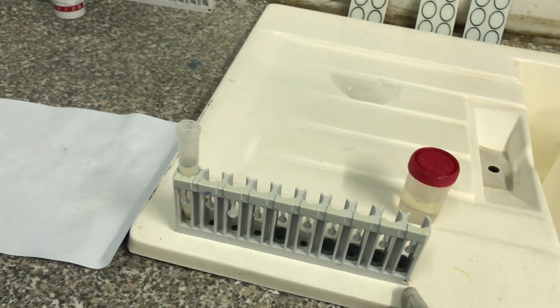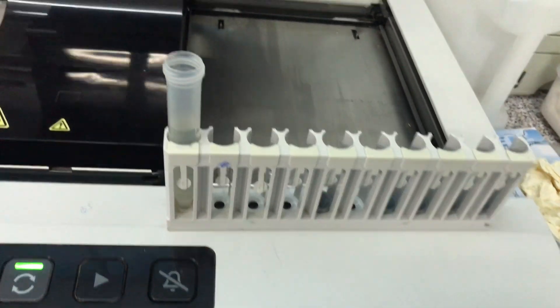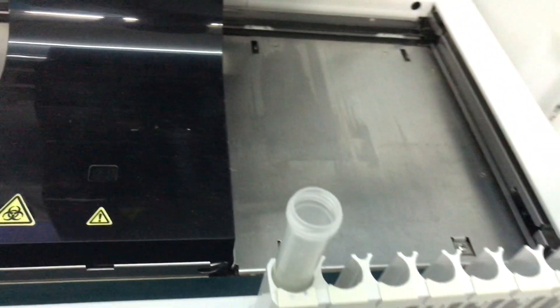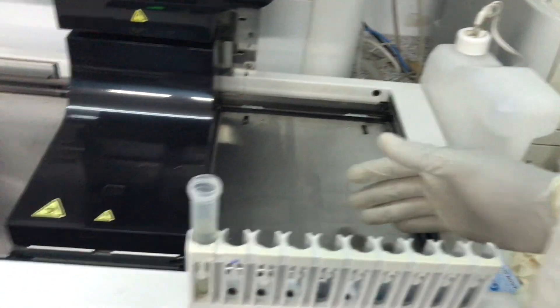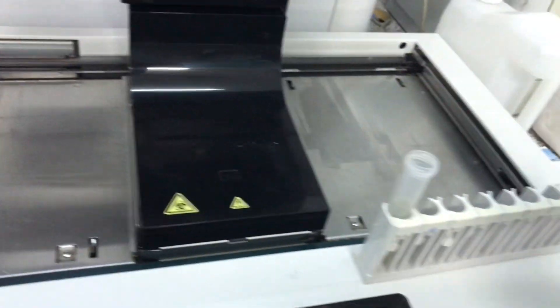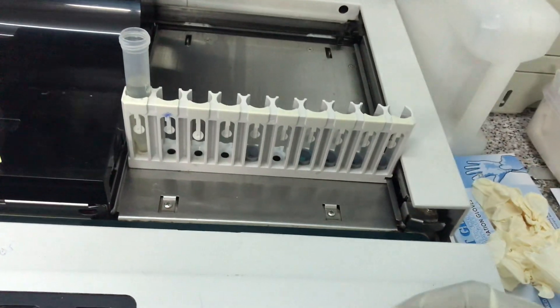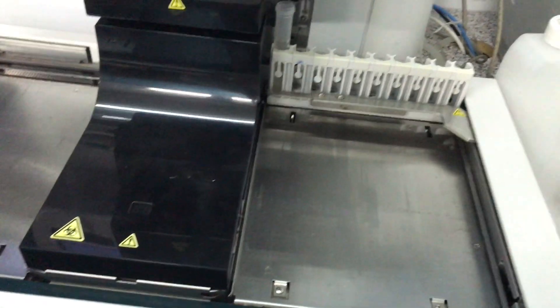What we have here is your rack, or your sample rack, and it has a protrusion at the end. You take the rack with the sample tube in there and you want to put this part into the protrusion. You make sure that it enters in there, and then it will automatically move. This part of the machine is the right pool, and this side is the left pool. You take your rack and insert it into the protrusion and leave it there.